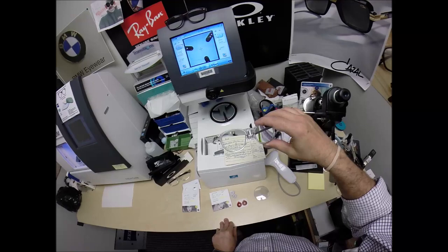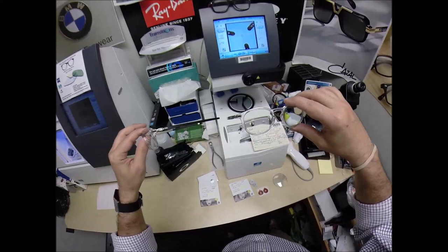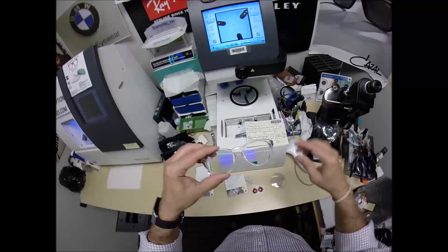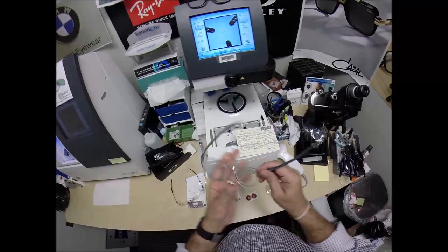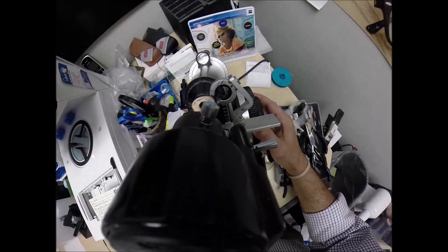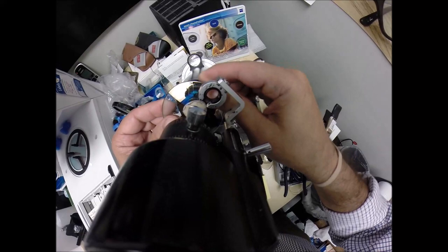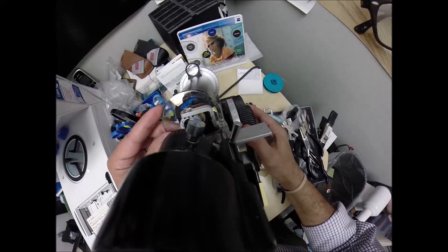I'm wearing the Oakley Pitchman R Carbon in polished clear — it looks very much like the round version of almost what Rod has, except I've got the carbon fiber temples, and I have DuraVision Blue Protect anti-glare. You see that purplish reflection? The mirror is just like an anti-glare coating on steroids — you've got a gold reflection coming off where I've got the purple. So I've got reflection envy! I'm going to put the power drum on minus 275 and rotate it until the spherical component of the prescription comes into view. Check your astigmatism correction — we're at minus 375.